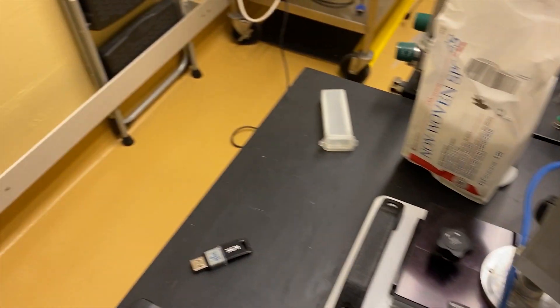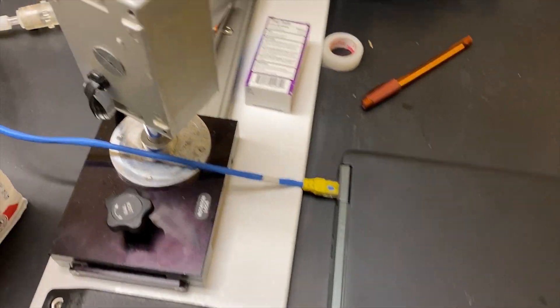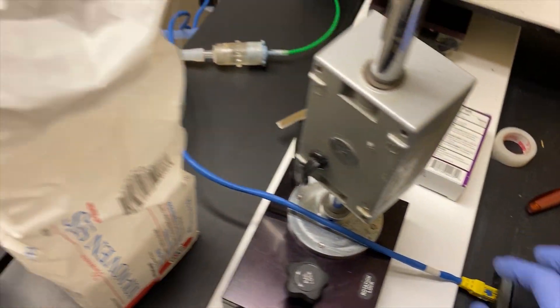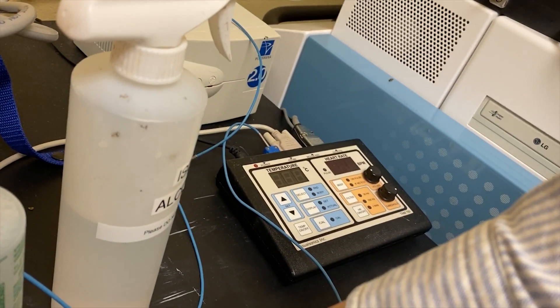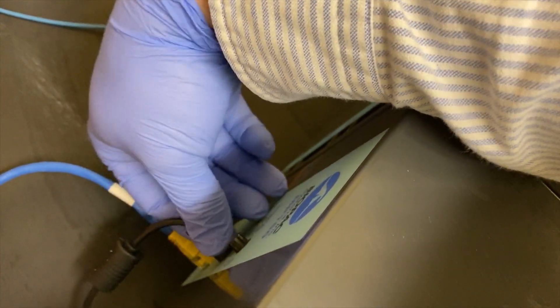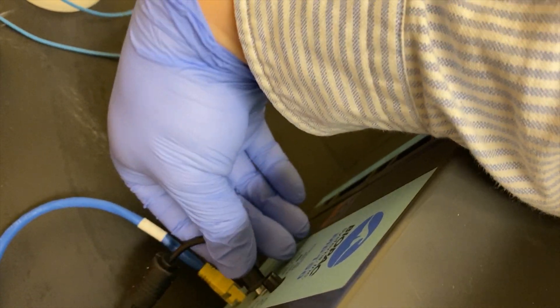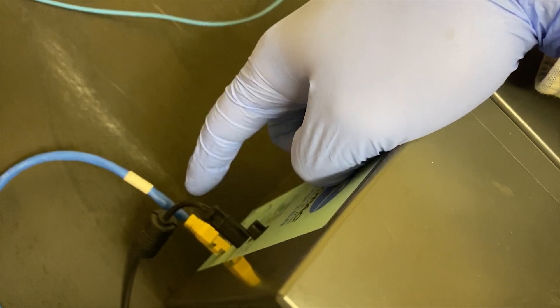And first I will talk about the connection. Here is a light cable, plug it in here and also the electrical AC power. Here is an on and off.